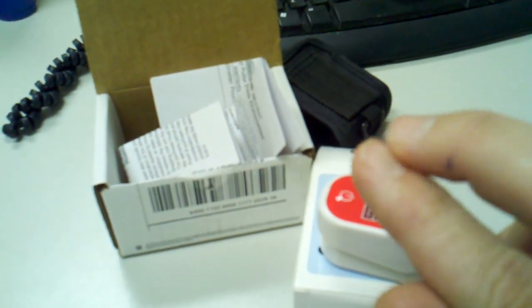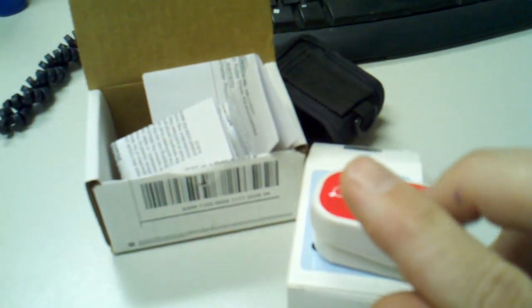If you have any nail polish, it will affect the readings.